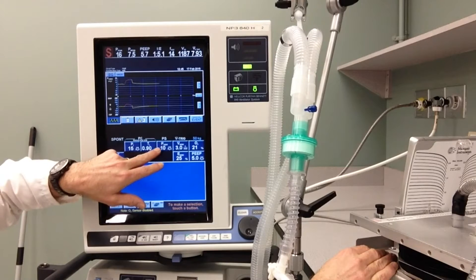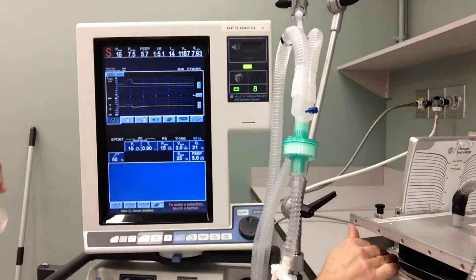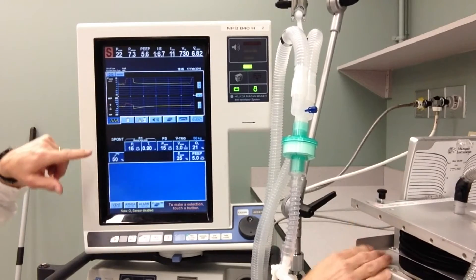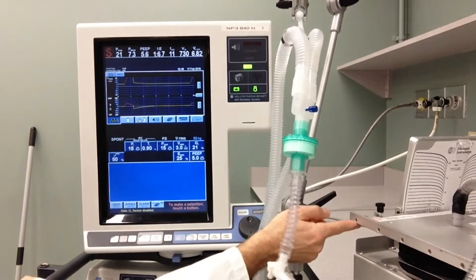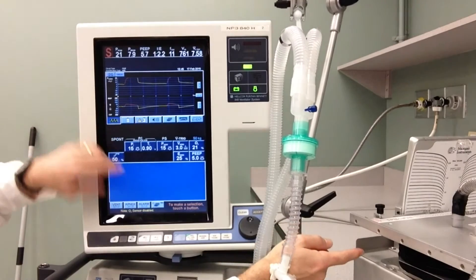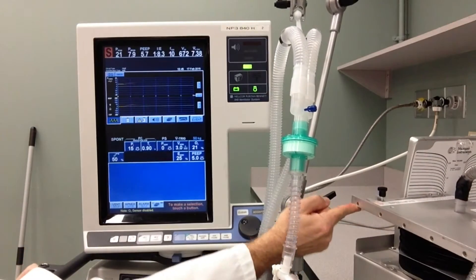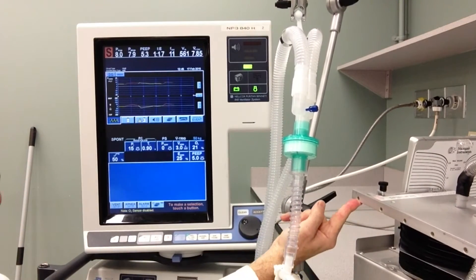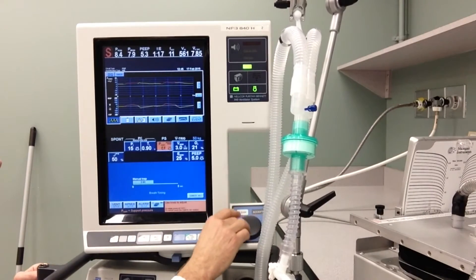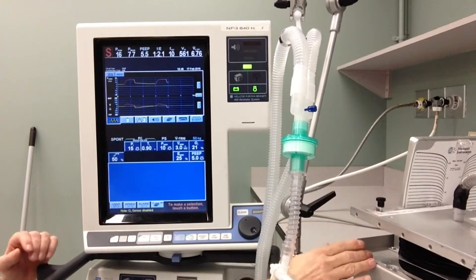At different levels of pressure support, we augment or change the work of breathing of our patient. If I increase the level of pressure support, the work of breathing is very minimal — with very little effort on the test lung, the patient can move a lot of air. If I decrease pressure support to zero — just CPAP — I have to use a lot more force to breathe in and out, and that's true of the patient too. I'm going to set pressure support back up to ten, a moderate level, so the work of breathing for the patient is really decreased.